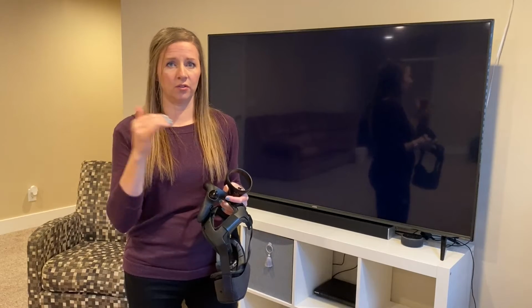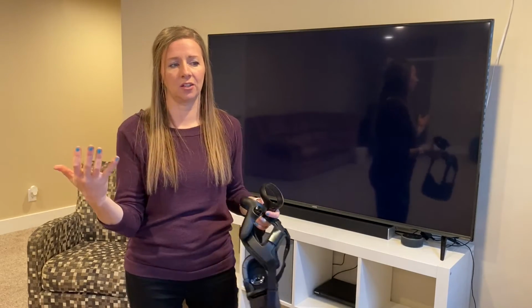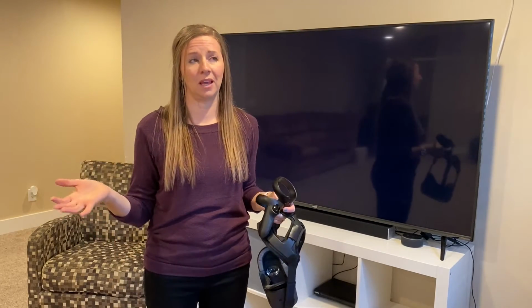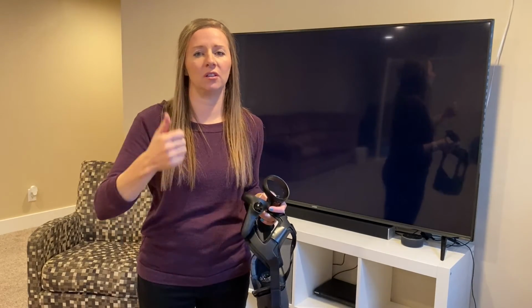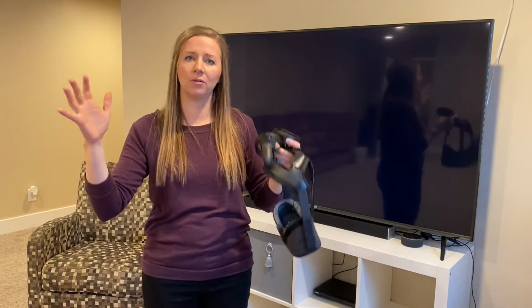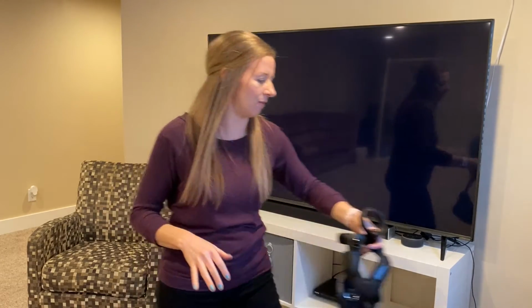When I change from, instead of doing the exact same thing every single day, that frequent change actually really helps me. And that's something that Vivid Vision has, is so many games. They have 9 different games plus the 4 tests. And so you can do the same skills. You can do Vergence or you can do anti-suppression, but with different games and in different scenarios with different backgrounds. So you're using different skills and doing it in a little bit of a different way. So I really like that aspect of Vivid Vision, that there's so much variety.